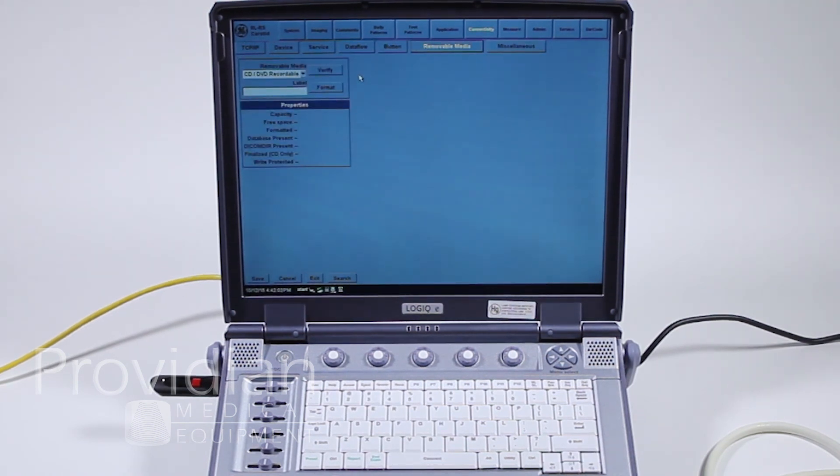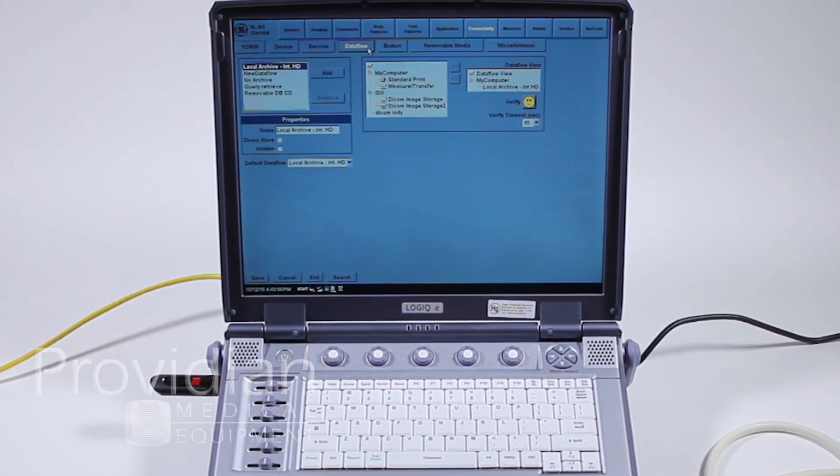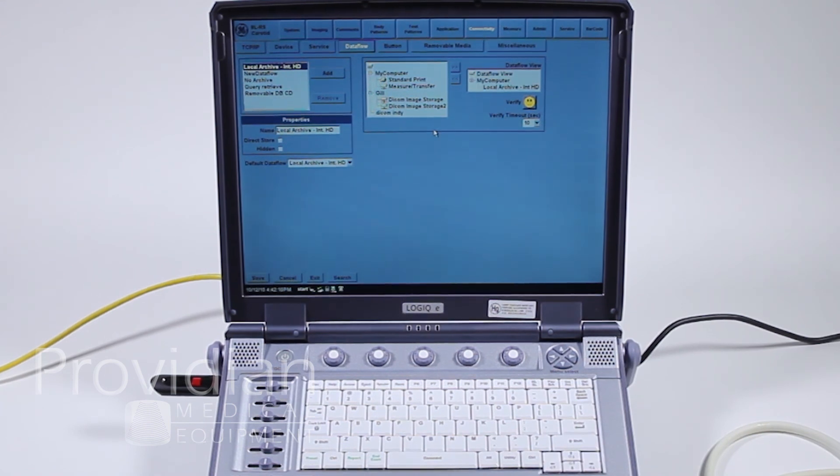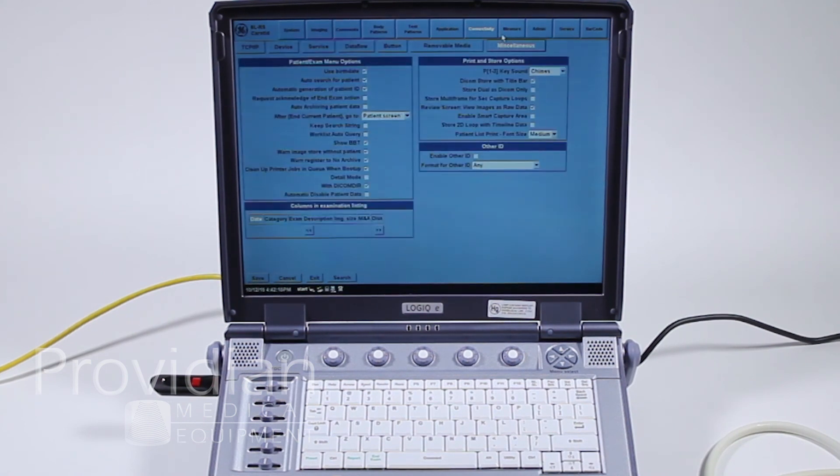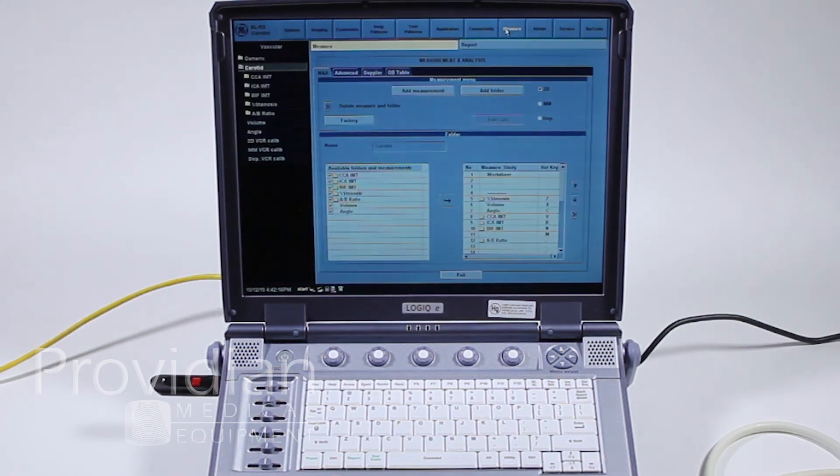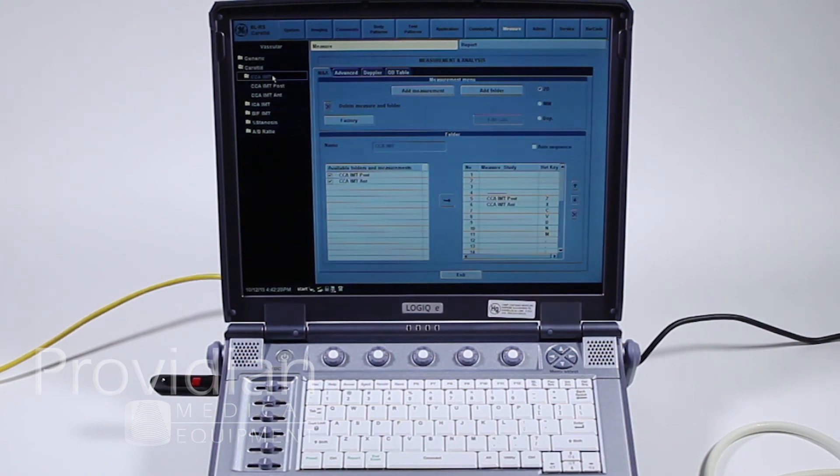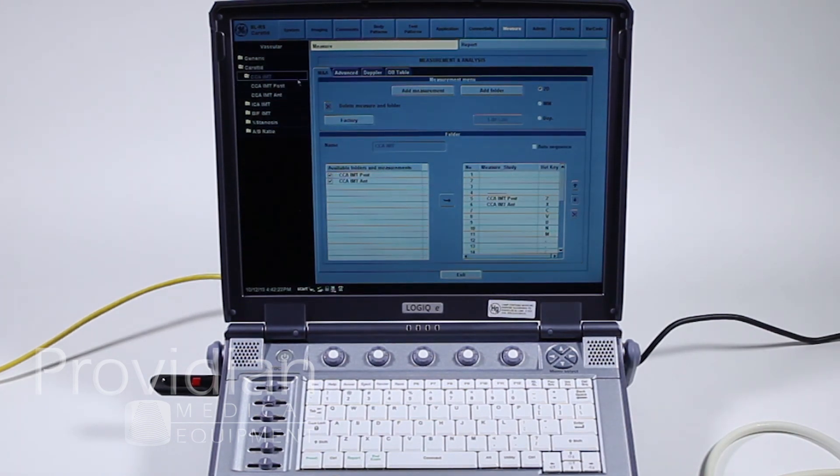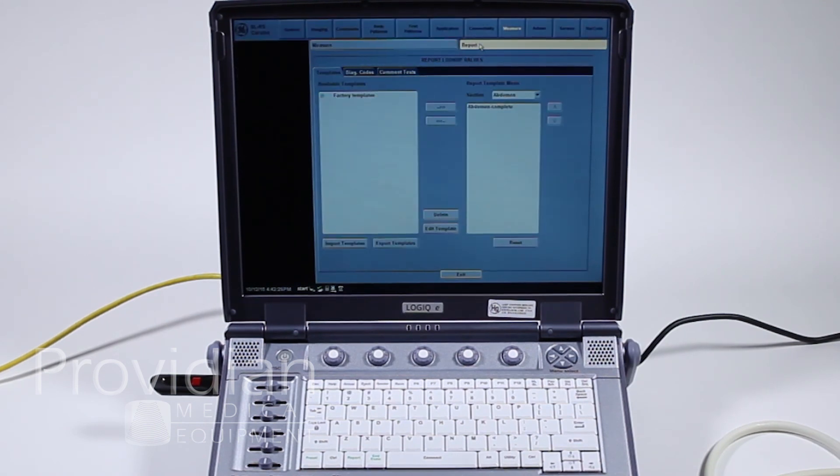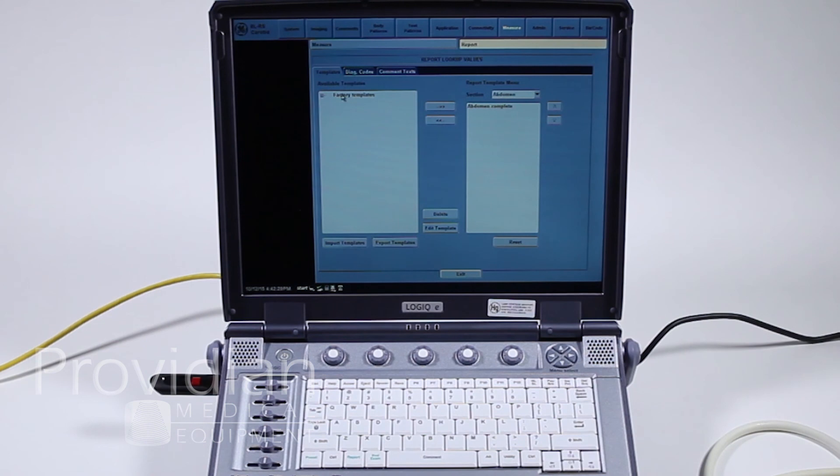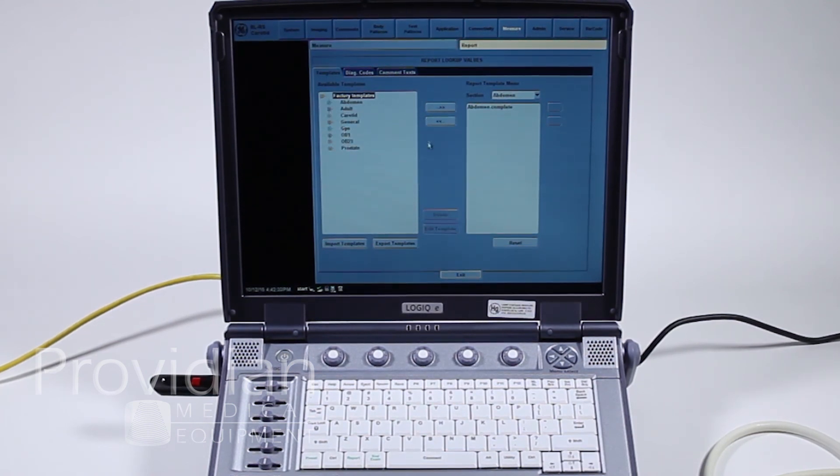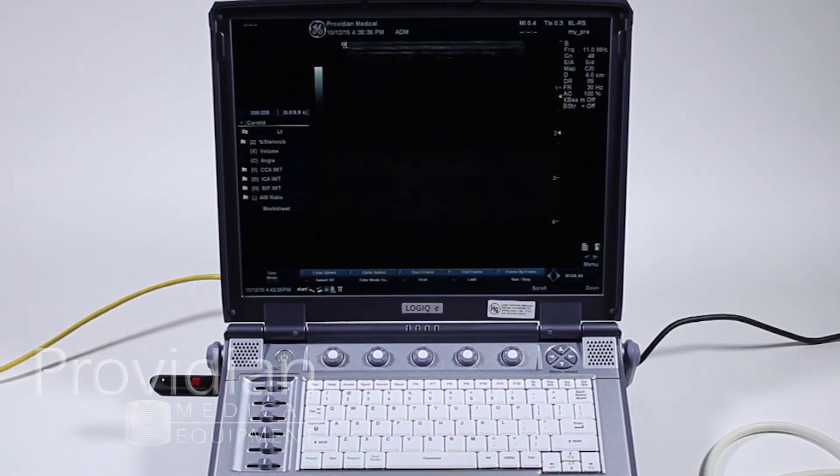Removable media. If you have a DVD recordable, this is where you would format that media. Button. We saw this. And the data flows, these are various data flows you can use when you set up, for example, a print button. You can have it do multiple things. Measurement. This is where you can change all sorts of measurements and their parameters. This is more than most people would do here. So typically, you'll just skip it. And then for reports, here are some templates you can use for various reports. Most people are fine with the standard that comes with it. But just so you know that it is customizable there.